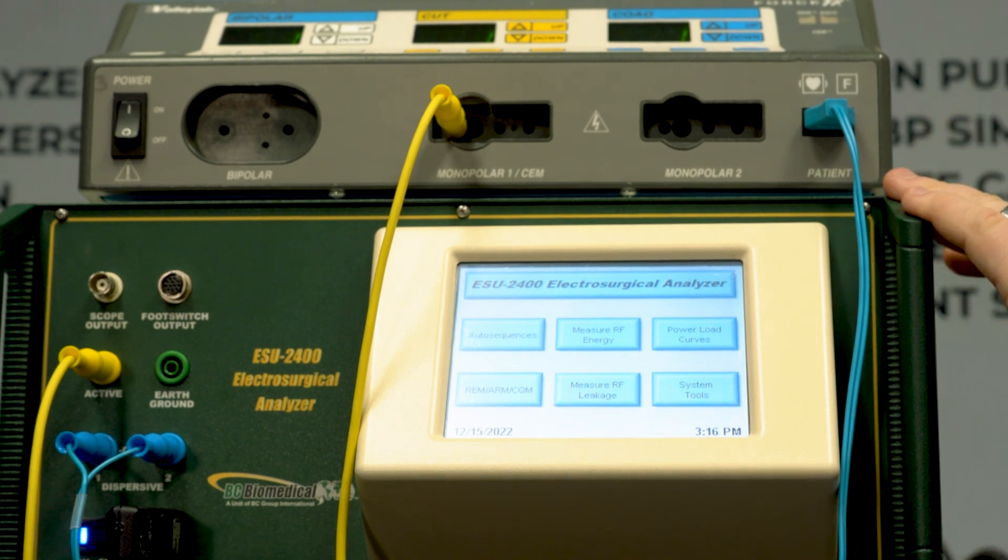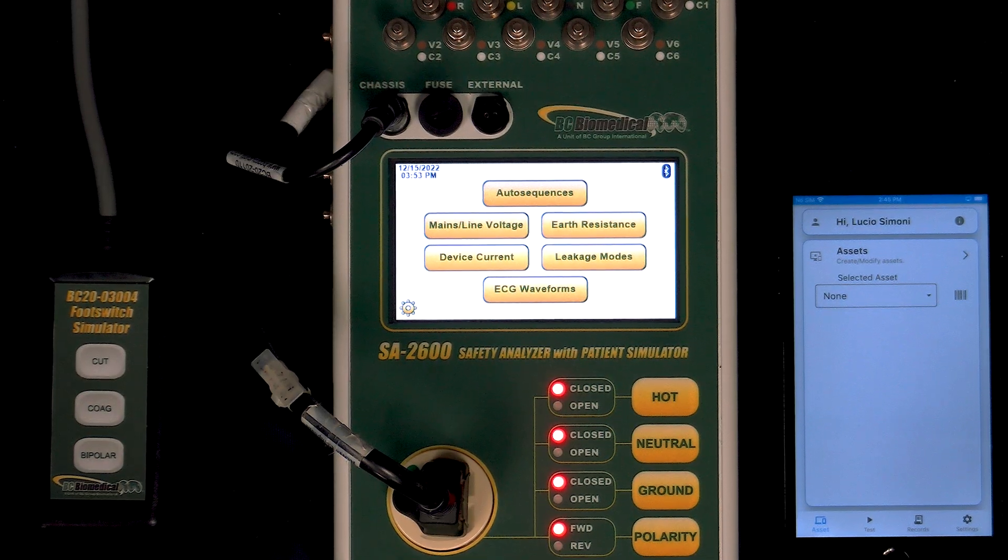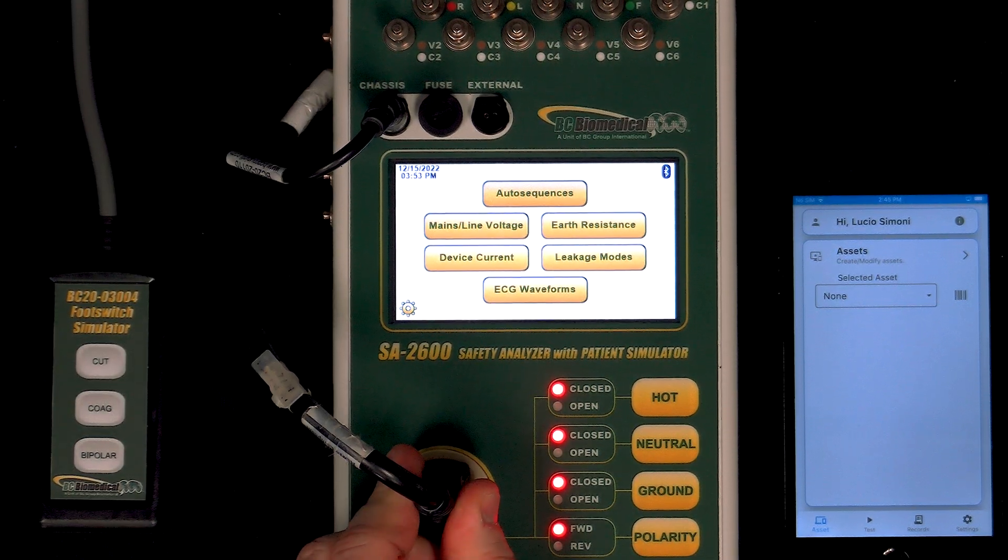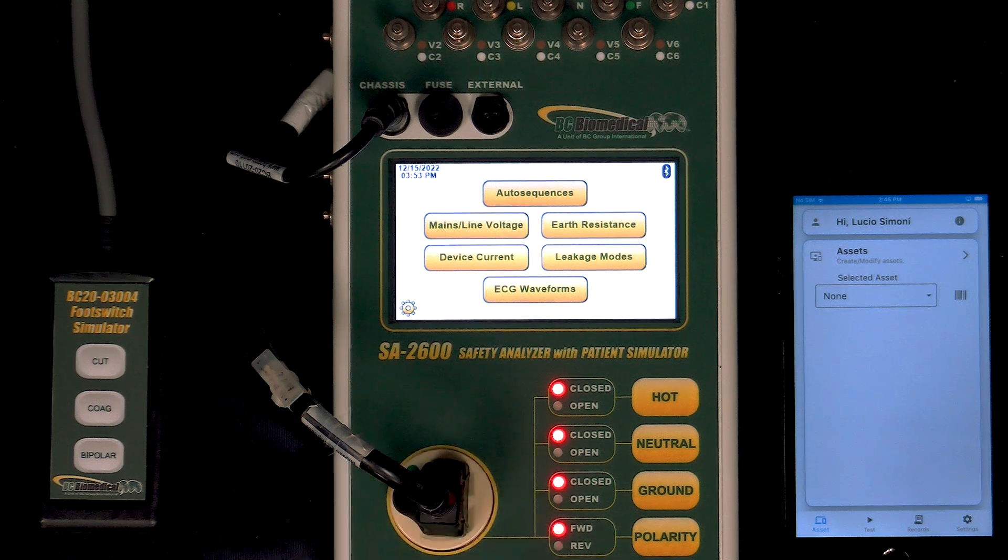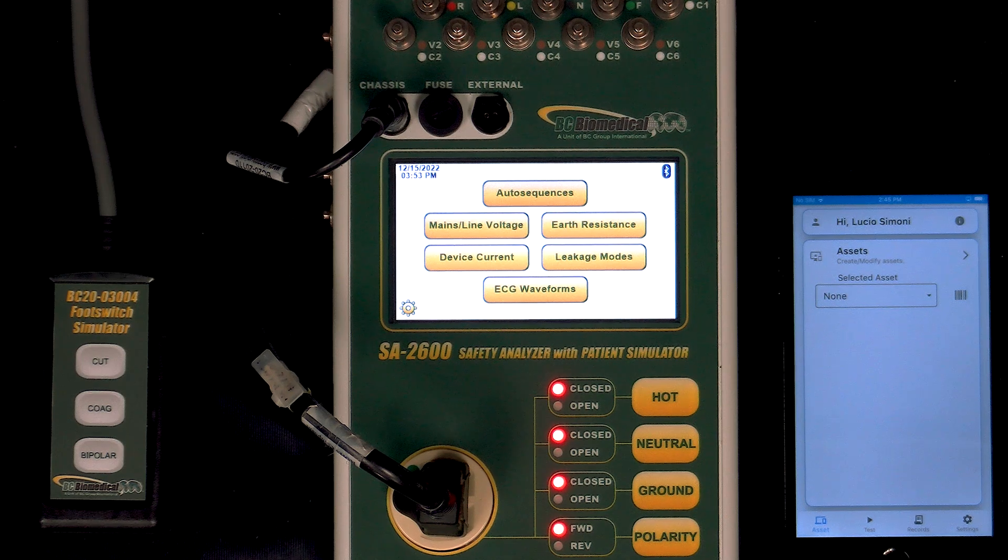We're just going to get right into testing here. The power for the ForceFX is plugged into my SA 2600 because we're going to do safety testing later. We made that connection now so it's already ready to go.